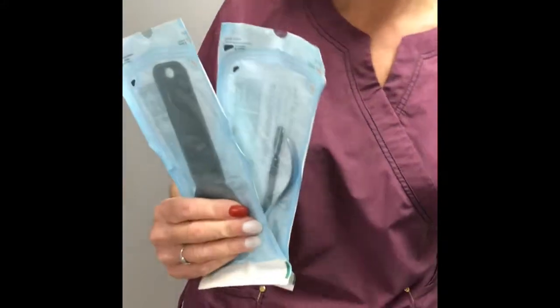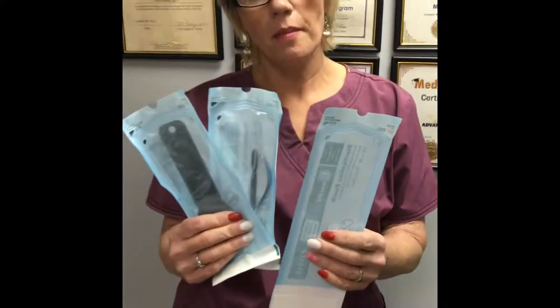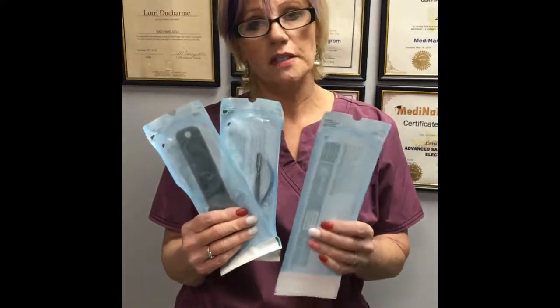This is really important — when you see them come out with the bags, take a moment to really inspect it. Oftentimes these bags are being reused and they're not even being used in the correct equipment. Look for those indicator strips. These are pretty standard industry-wide bags purchasable at supply stores. Watch for the indicator strips and the crinkly sound — the paper gets wet and then dries in a dry cycle; those are some things to look for.